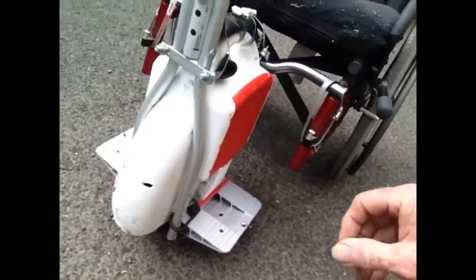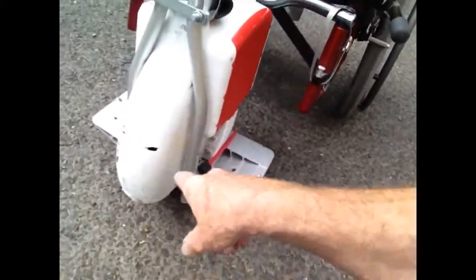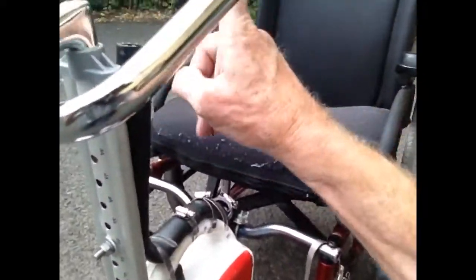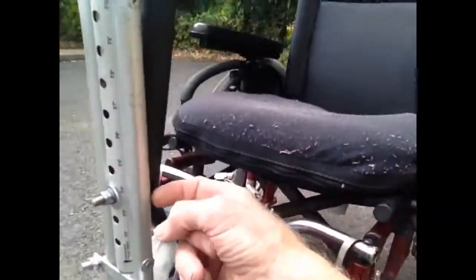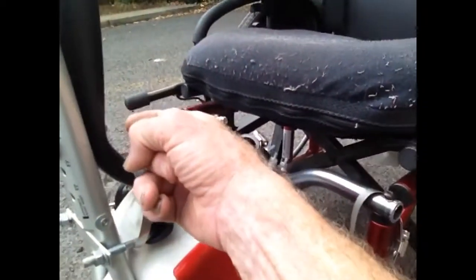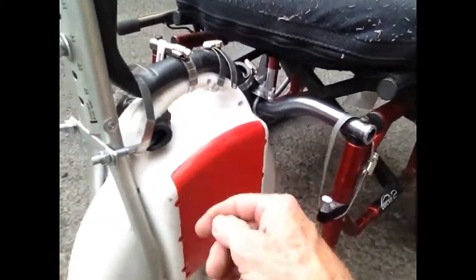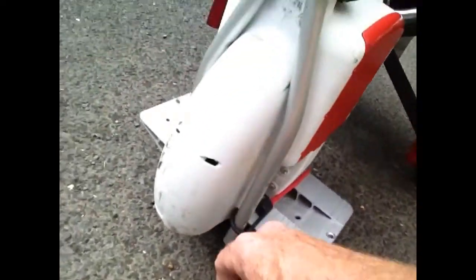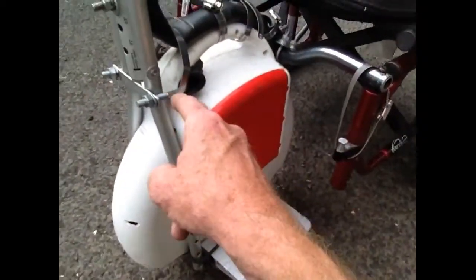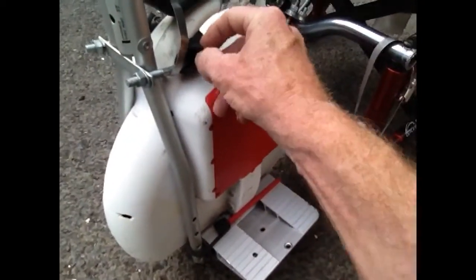Anyway, with this crutch piece, it naturally came off and I was able to put the handlebar neck down inside — it fits perfectly, goes far enough down to where I could use this washer dryer hose here. I drilled a hole in it right here to hook it up and stabilize it. For the crutch I've got a regular bungee cord strapped to the bar, going underneath and hooking up right up front here — it is working for now. The front part of the crutch has a handlebar grip so it's easier on your hand than the hard plastic.